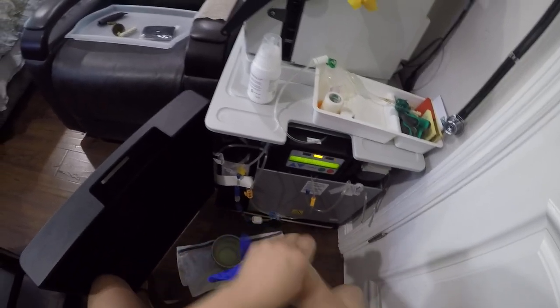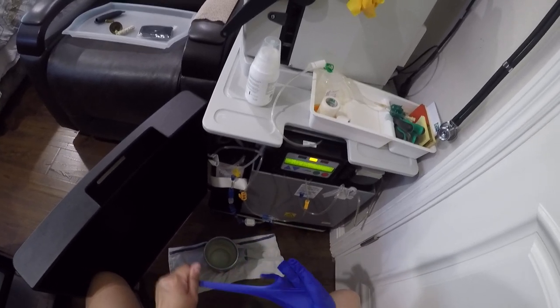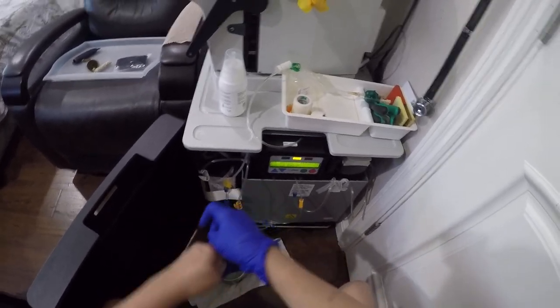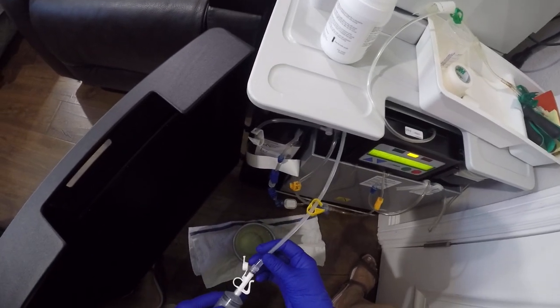Lay the rag there. You'll need a pair of gloves so you don't get bleach smell all over your hands. Then take the drain line and attach Mr. Peanut.